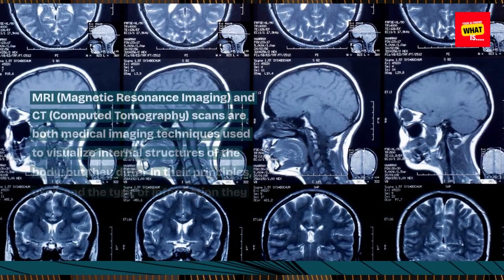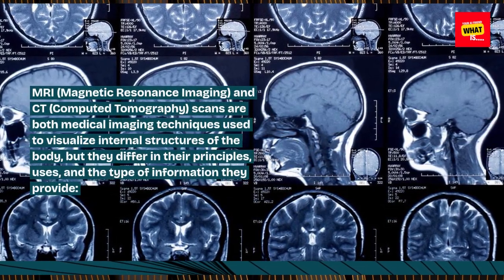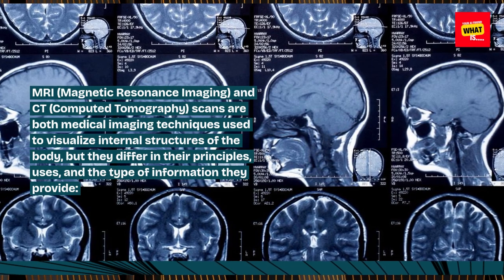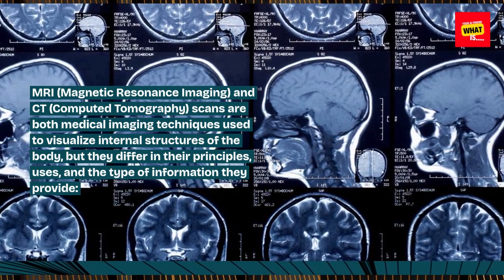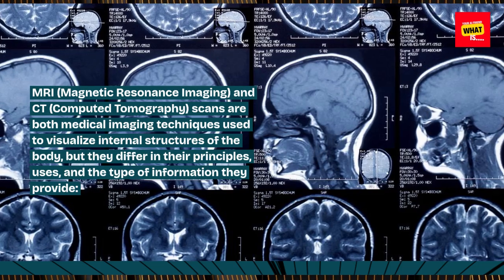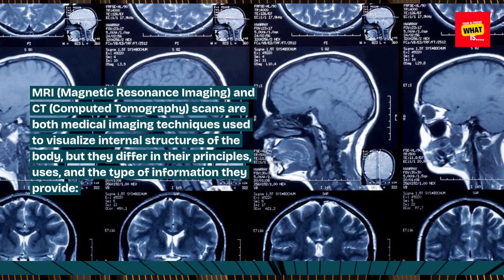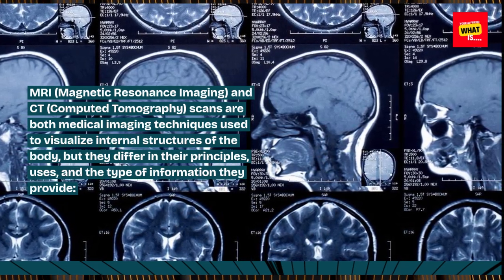MRI, Magnetic Resonance Imaging, and CT, Computed Tomography, scans are both medical imaging techniques used to visualize internal structures of the body, but they differ in their principles, uses, and the type of information they provide.